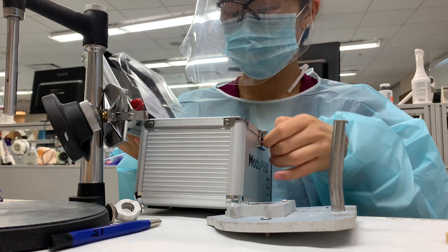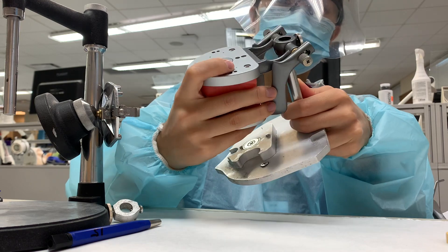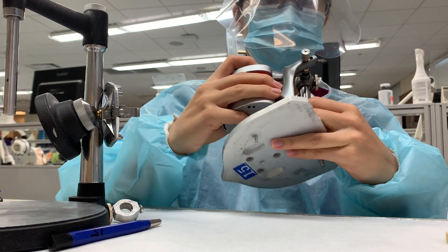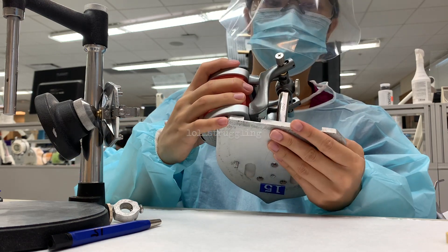If you're really familiar with it, you can get it out by itself. I'm going to tap it onto the rod and it snaps in there. Then you can secure it by tying the little screw on the back.